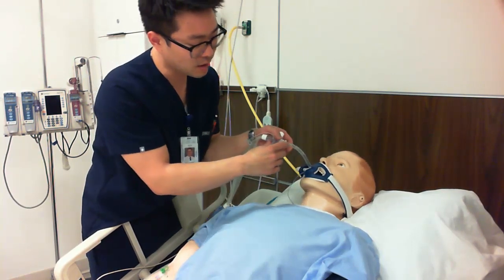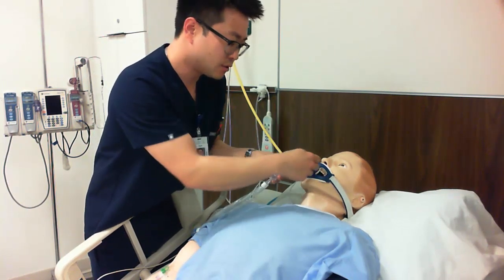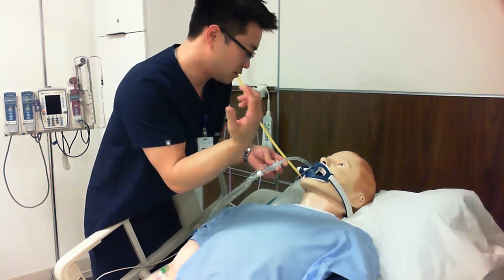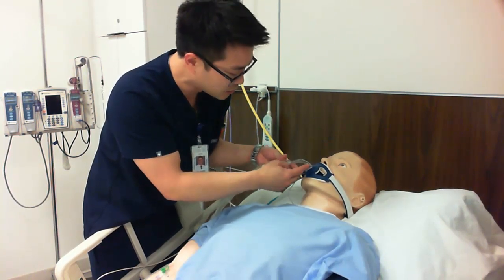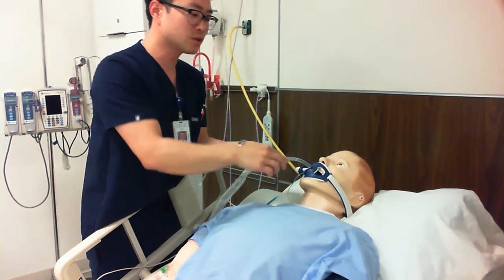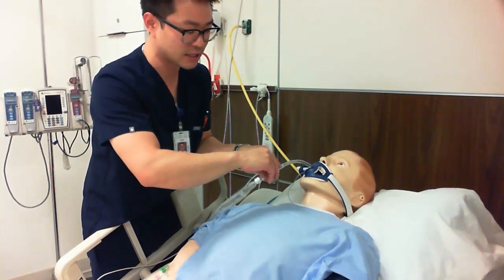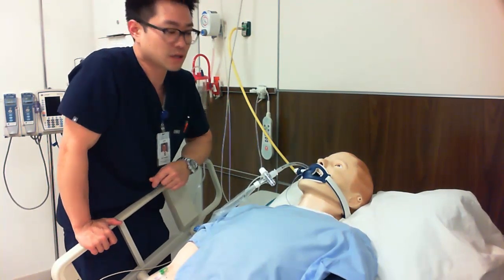The second part of this information is I want to know the size of my endotracheal tube. There are two sets of numbering systems on these tubings. You'll see one in a bigger font, just your numerals. It says 22, goes to 24, 26, 28, and there's a little triangle above it. Those are the ones we use for measuring the distance, how far it's in our patients. And there's this tiny, tiny little number, and it says 7.0. That's the size of our endotracheal tube. That is what I want to make sure that I record.